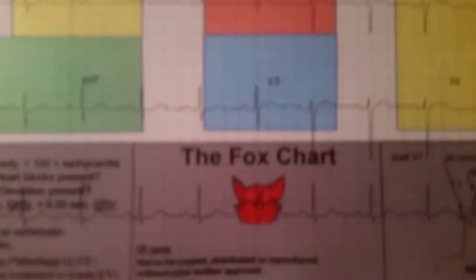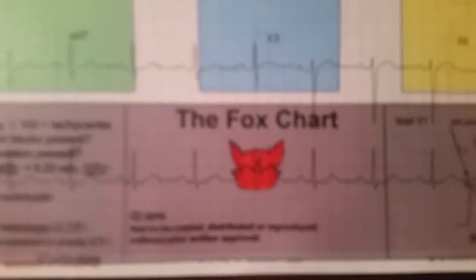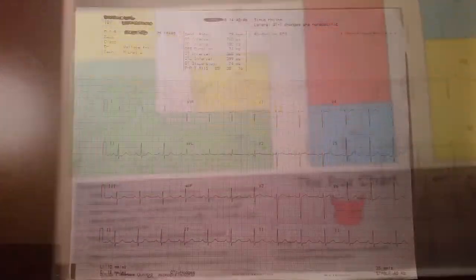The FOX chart was created with the understanding that EKGs are difficult to interpret. It was created to be an easy-to-use tool that can be used for teaching or at the point of care. This chart will help you quickly and accurately identify EKG groupings.